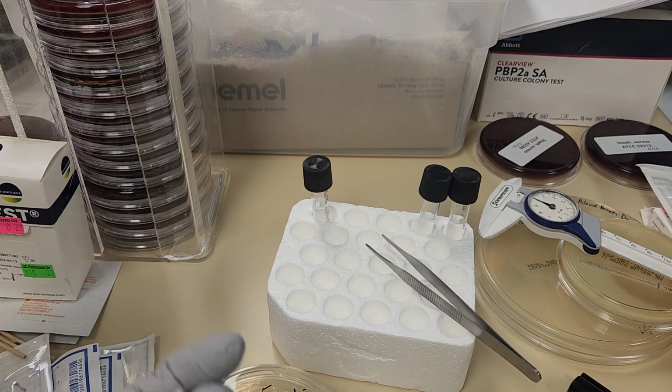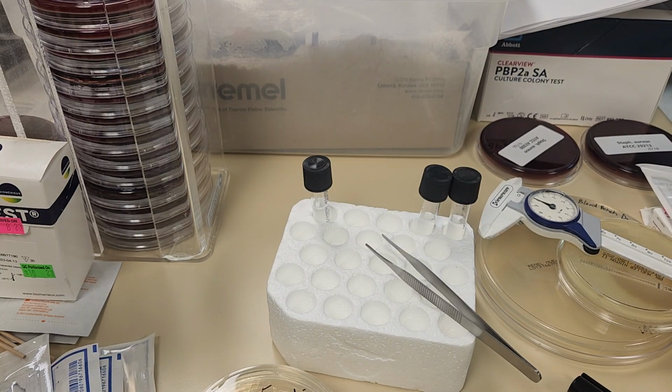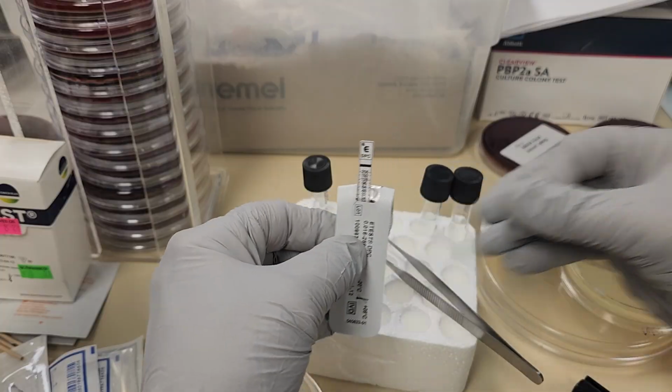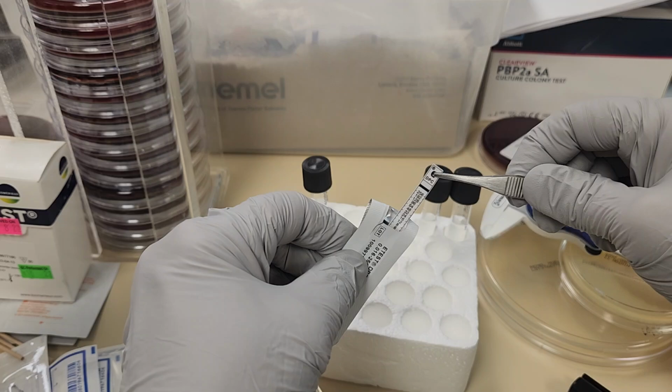So this time I'm actually using the E-test. Just so you know, I'm using expired discs and E-test strips. The ones that I'm setting up are not necessarily the ones I would use on this particular organism, because I'm using what I have access to, so I'm not wasting material. Now I'm going to break this open. You see this strip kind of comes up. I don't want to touch that strip because it has a gradient of antibiotics on it.